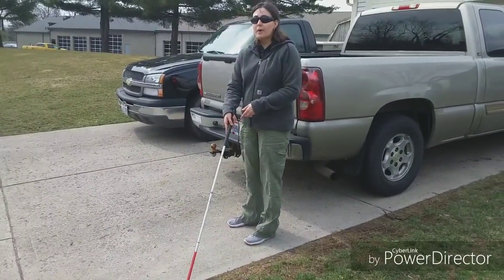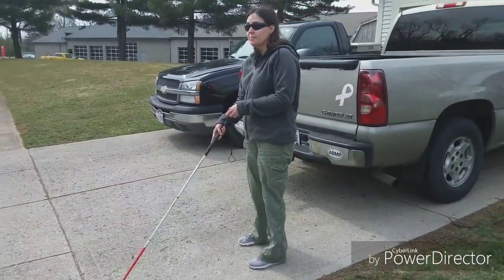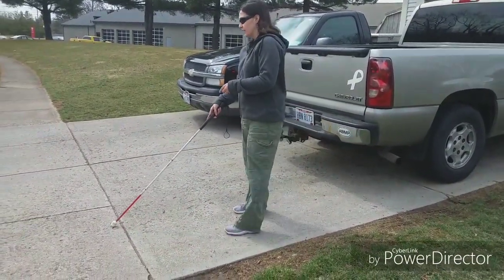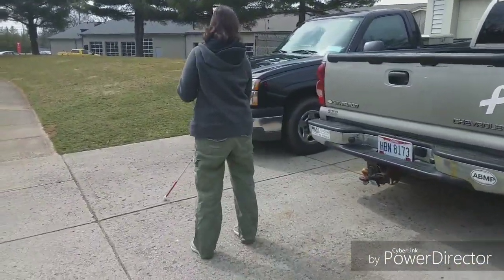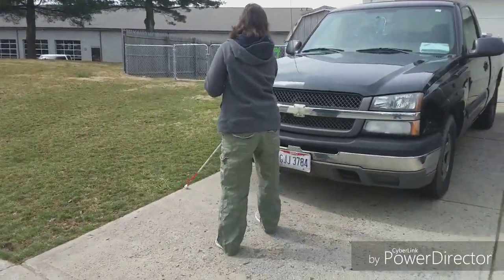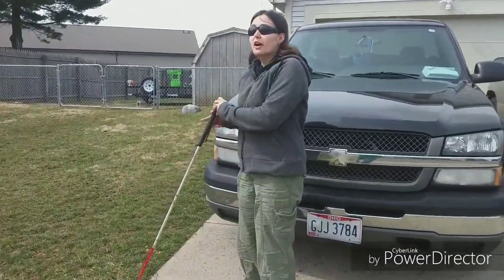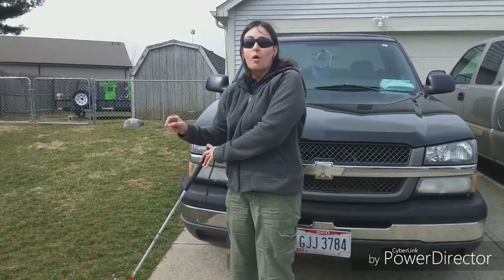So how do you cross? I walk a little way because there's a hitch on the back of the truck and I don't want to hit that because that leaves a big knot. So I know I'm on the driveway, and I know I have to walk across it, find the grass line, then go down — and the mailbox is right on the other side of the sidewalk.